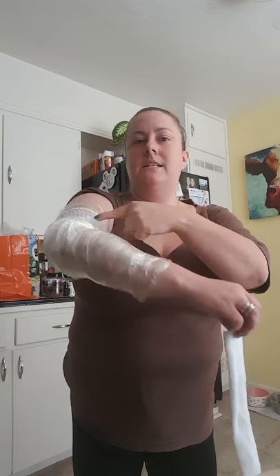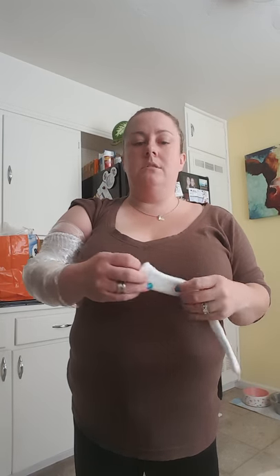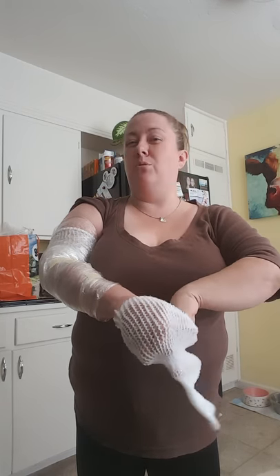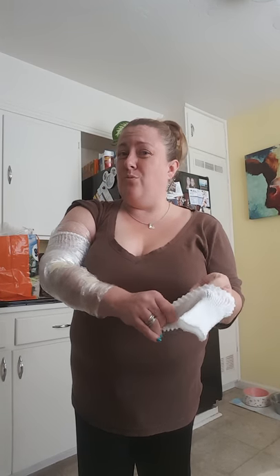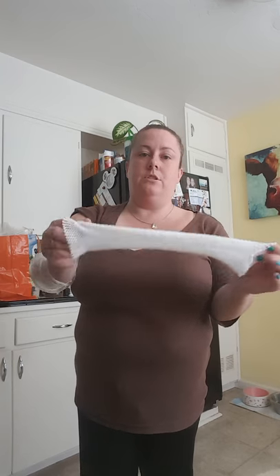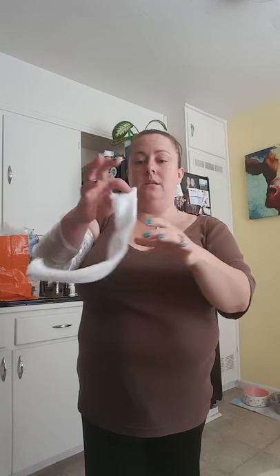When you do get your pack from your medical supply place, this is the cotton they send you. I thought I could save it and do half and half — just order some extras. It stretches out as you put it on, see? I wouldn't go more than two to three days with it — I think that's gross. It makes it nice and tight so you can actually move your arm and it doesn't roll down. By your third day it's really starting to roll down from the top and it's just annoying. Don't cut it in half — it's a waste.